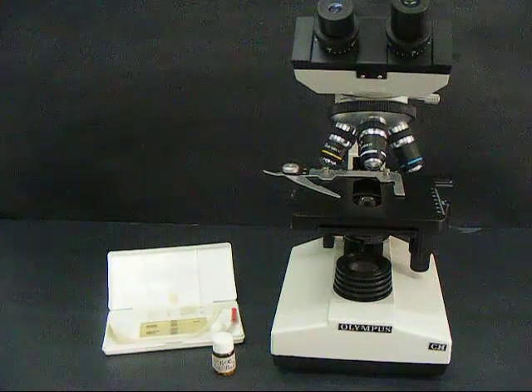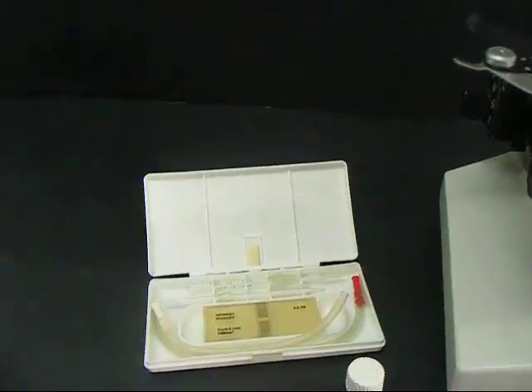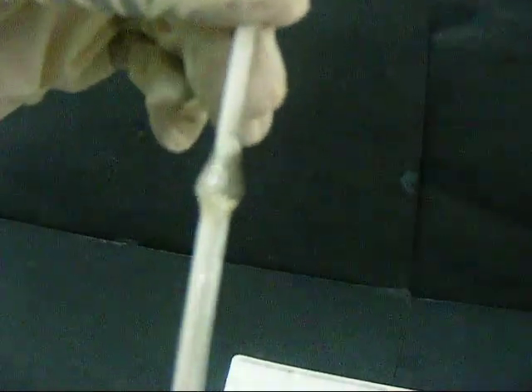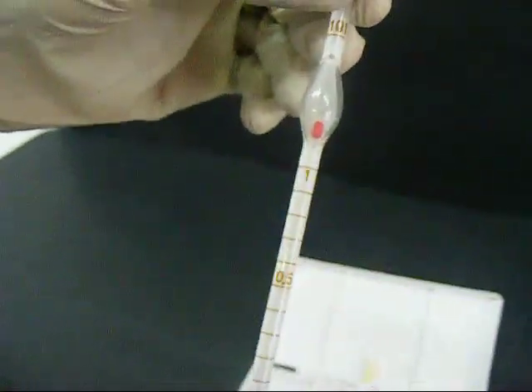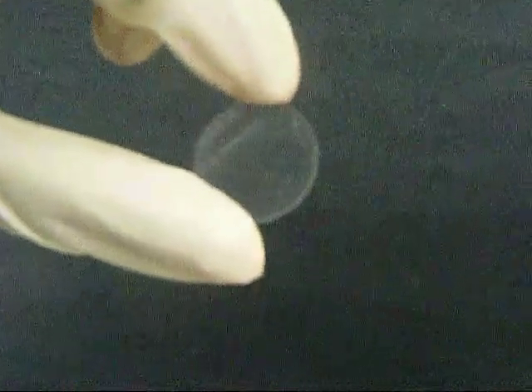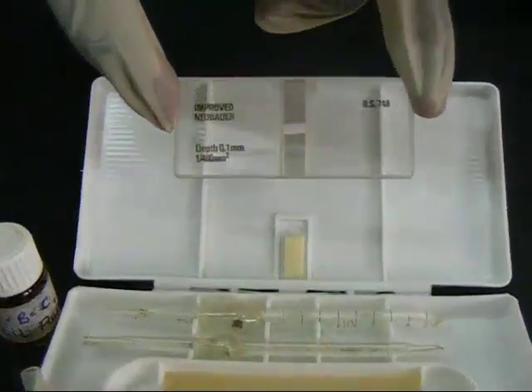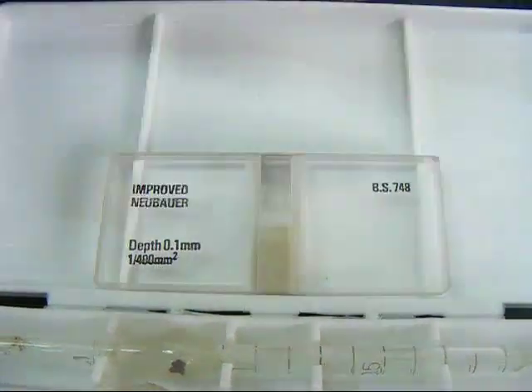In performing a red blood cell count, a microscope and a hemocytometer apparatus are needed. A hemocytometer apparatus consists of a white blood cell pipette, a red blood cell pipette, a cover slip, and an improved Neubauer hemocytometer of depth 0.1 millimeters and area 1 over 400 millimeters squared.